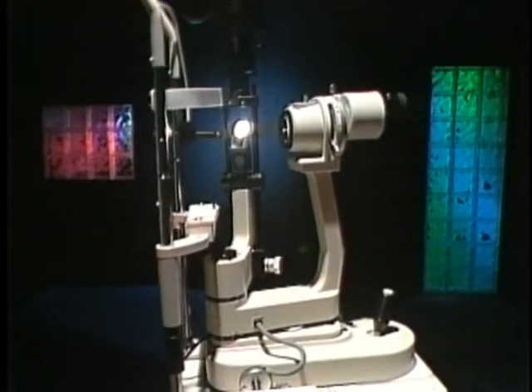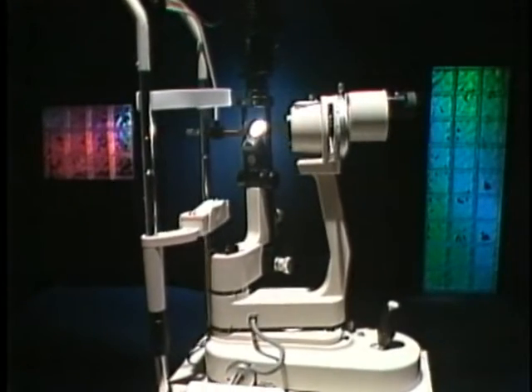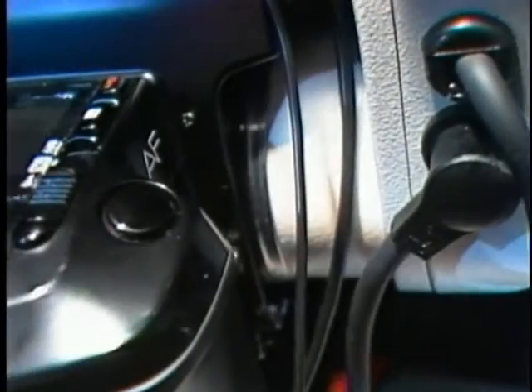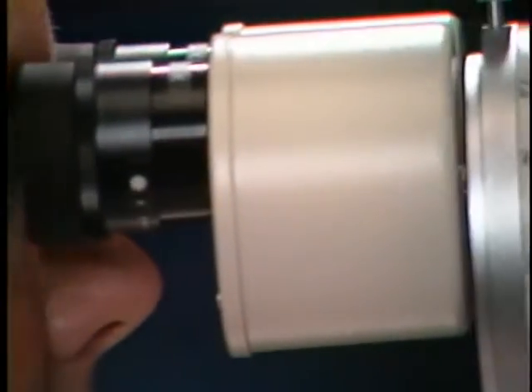The biomicroscope, a valuable tool in today's eye care practice, is the product of optical, engineering, and electronic technology. The biomicroscope, also known as a slit lamp, is a powerful and versatile instrument.